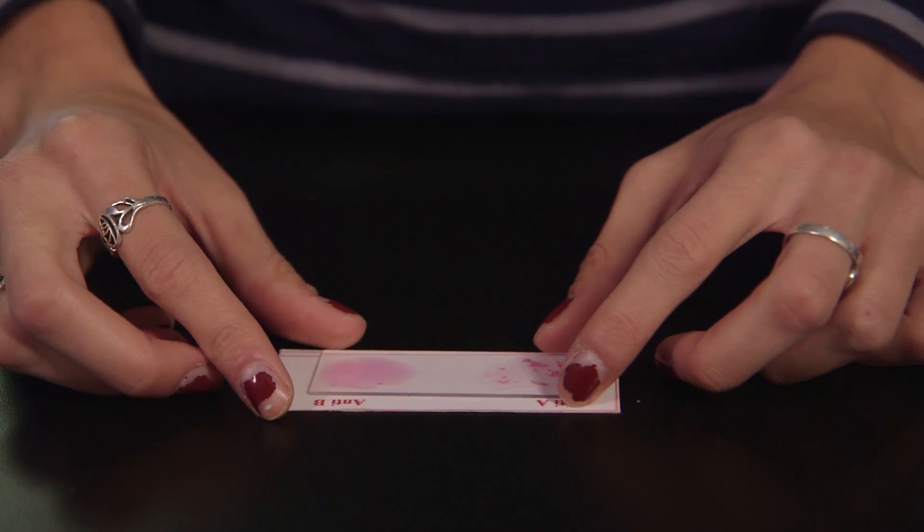Examine the samples for signs of agglutination, a clumping or residue on the bottom of the slide. This clumping means that the antibody in the serum reacted with the protein on the blood cells. This is what happens inside the body when a patient experiences a transfusion reaction.